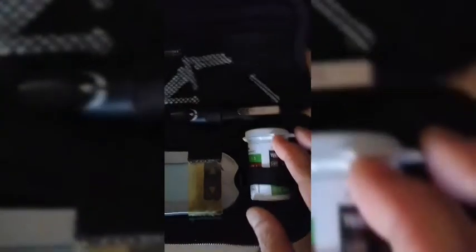So, no need to worry about going to the clinic to monitor your blood sugar if you are diabetic, or if you are regularly monitoring your blood sugar levels. It's really better to have this kind of glucometer or blood sugar monitor. So, let's see the procedure — the next steps. What is the procedure on how to take the blood sugar and see its result? Agad-agad may result siya.